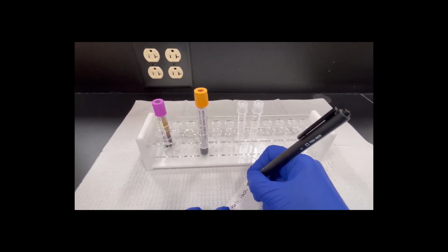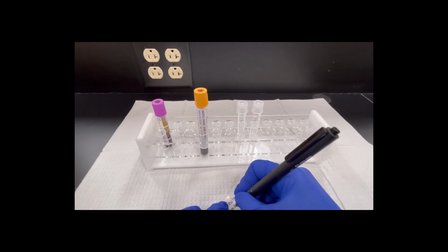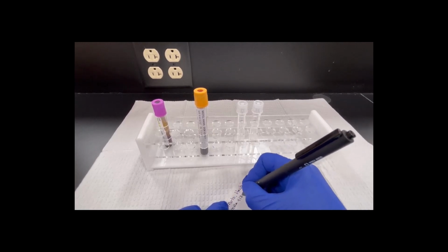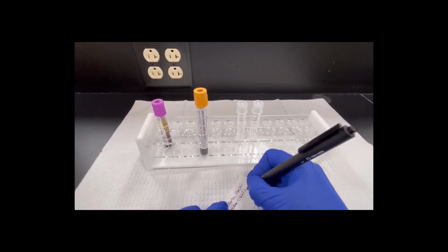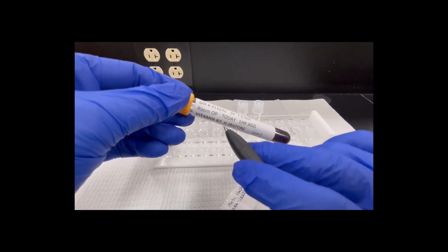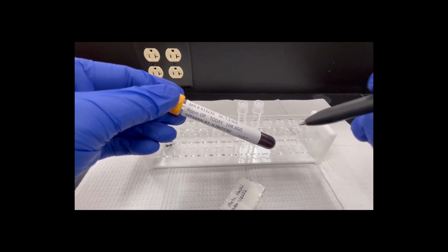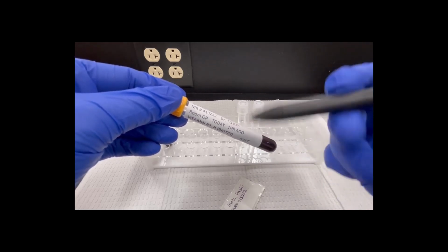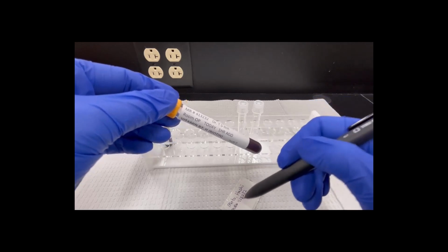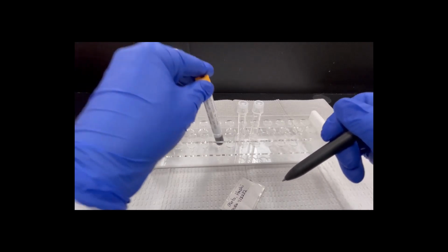last name, first name. Last name's Moto, first name's Hashi. MR number is 413232. Now on this tube, you can see the date of draw is today and the time was 1 hour ago. Because in our lab, we reutilize these labels time after time, when you see this in our lab, take it from the time that we make the label. So it's always the time and date of the draw, not the time we're processing it.